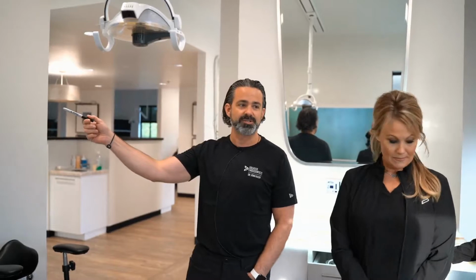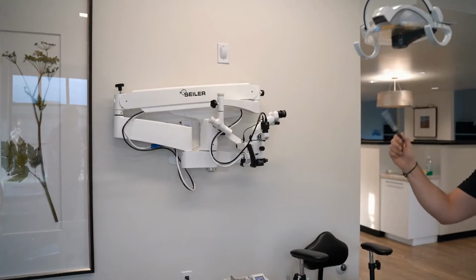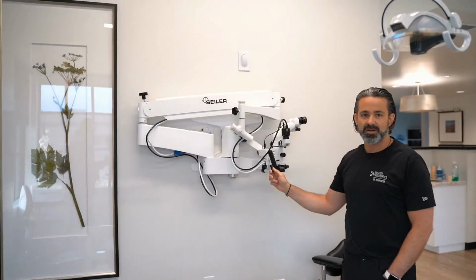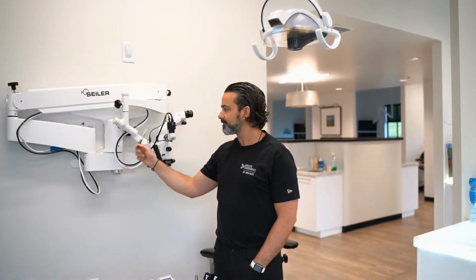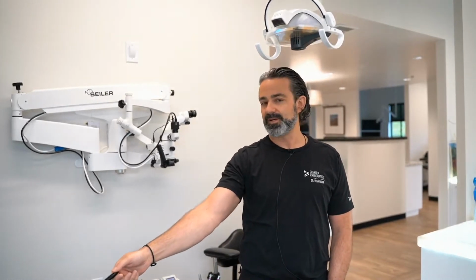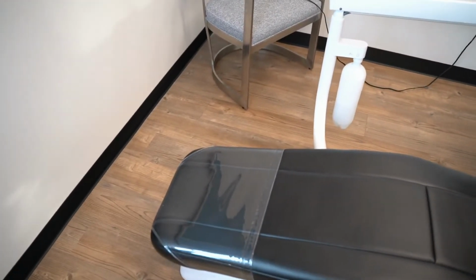All right, so first things first, let's talk position. The position of the microscope. Now, I've done a few offices throughout my career, and that microscope has actually changed positions. Right now, I have it on the right side wall of the room. If we think like a clock, the head of the chair is 12 o'clock, and then you can do the math: 6 o'clock, 3 o'clock, 9 o'clock. So I'm over here at the 3 o'clock position. I've also done it at the foot of the chair, more at the 6 o'clock position.